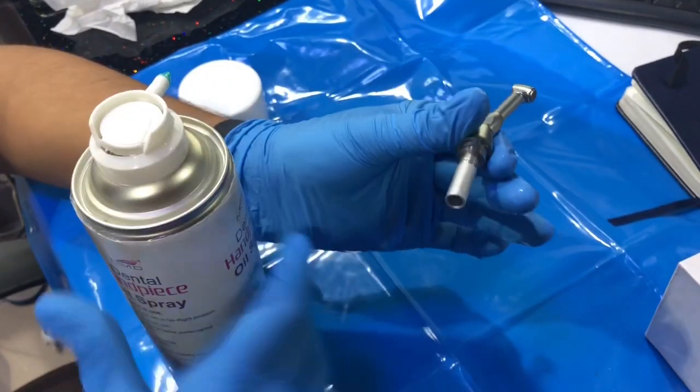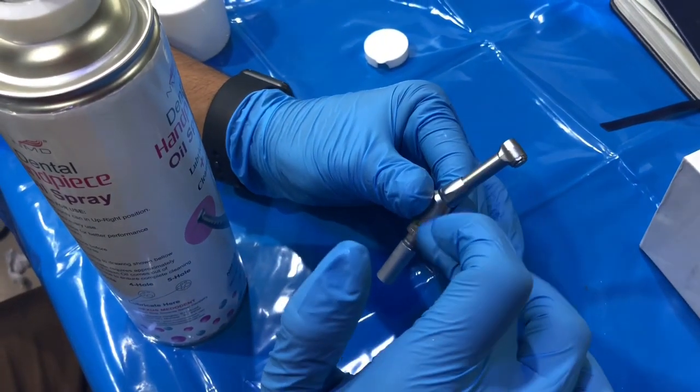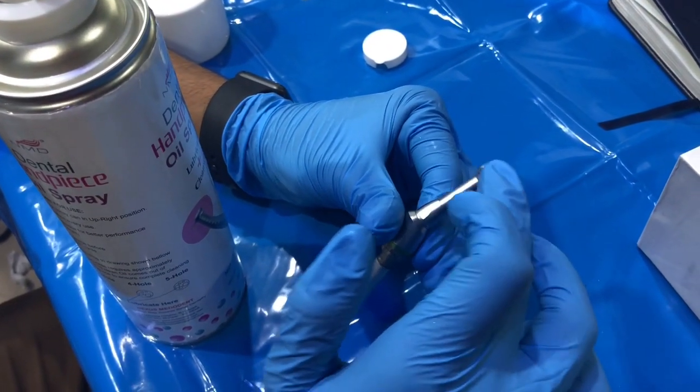This way you've made a full lubrication inside the endo handpiece to the cartridge.